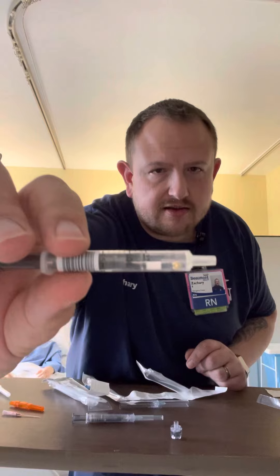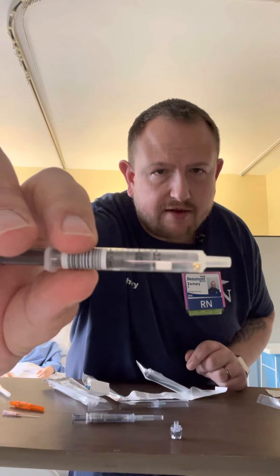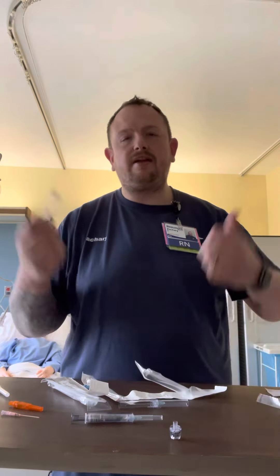If you look inside of there, you're actually going to see a small ball, and you're going to see a wafer. That heparin wafer — that's four times the amount of heparin as our normal product. So keep that in mind. But it'll actually be less clotting when they take it up to the lab.